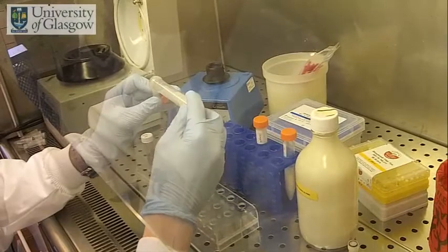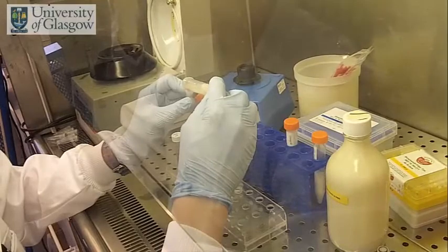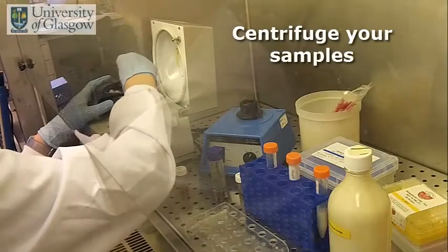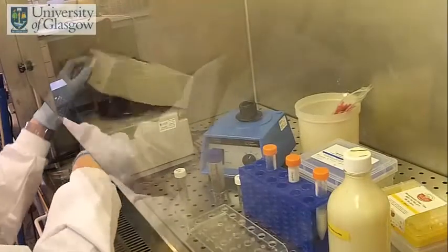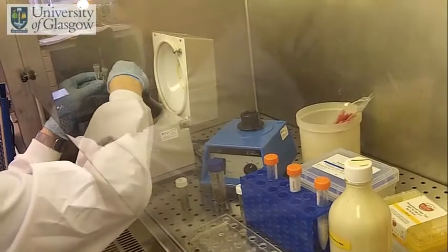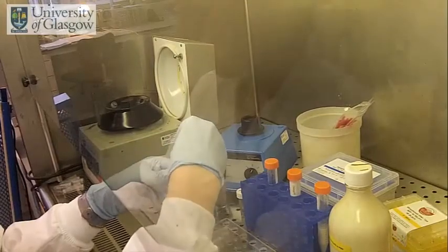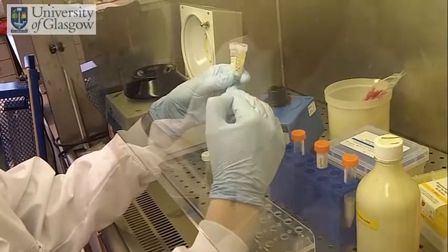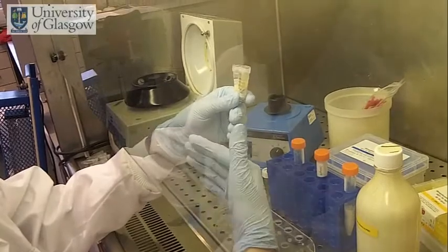The resultant mixture is then poured off into a 2ml tube so that it can be centrifuged. During this centrifugation, the kaolin and the solid matter from the fecal sample will bind and be pulled down by gravity, the centrifugal force, to the bottom of the tube, and it will allow the sample to split into two separate layers. So we'll have the kaolin and fecal matter on the bottom layer and a nice clean supernatant on top, containing the salt water, bacteria, viral particles, etc. from the sample.